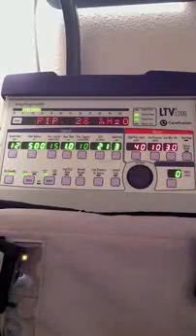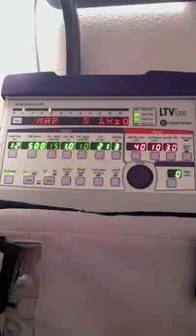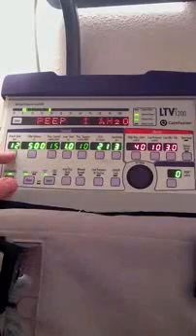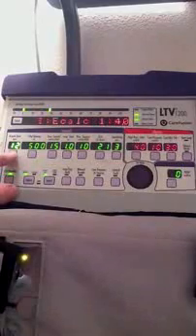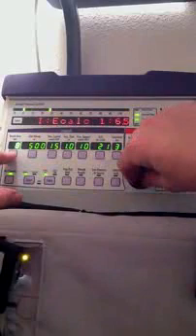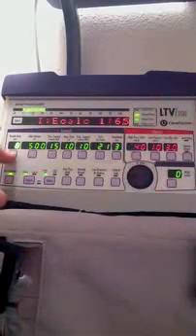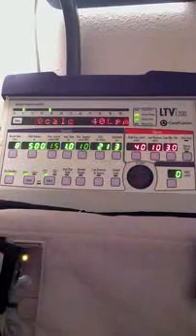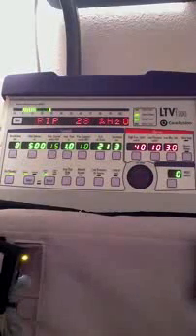So changing a setting is actually quite easy. Let's say that I want to decrease my respiratory rate to 8. I'll go ahead and select that, and everything else will dim out while that stays lit brightly. Then with the selector knob, I'll select that again, decrease the rate to 8, and hit select again, and it accepts that. If I fail to hit select, it will wait, I believe, up to 5 seconds and then put in whatever you happen to select.